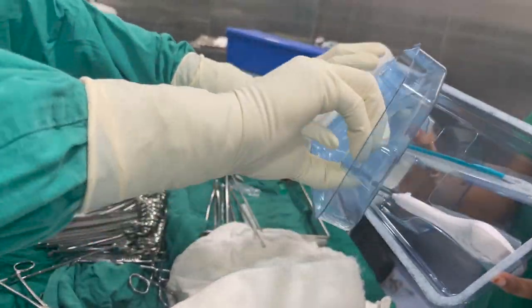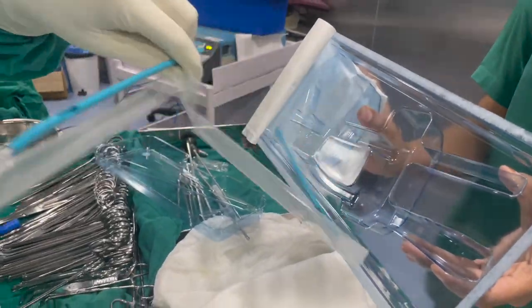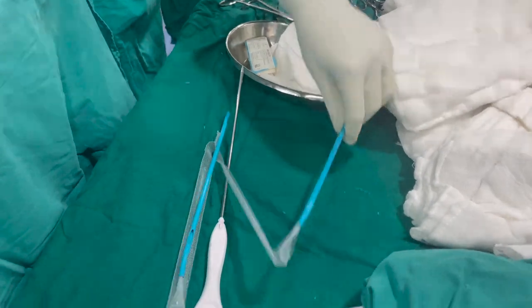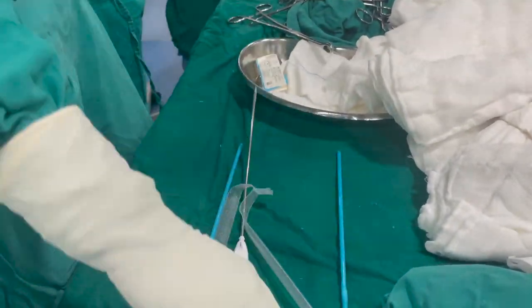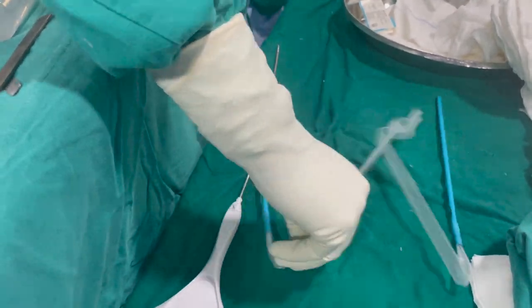The pack contains one needle with a plastic handle and one mesh which is nicely packed in a polythene sheet with two blue sheets at each of its ends.